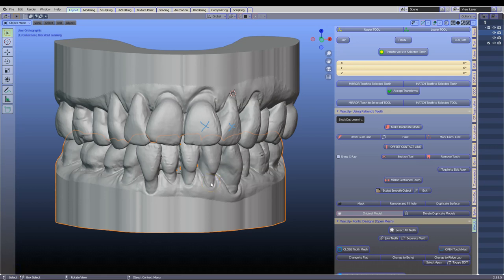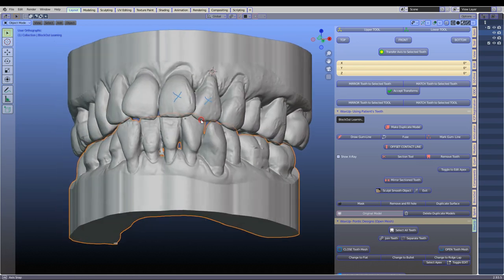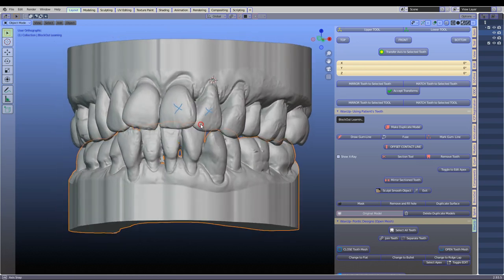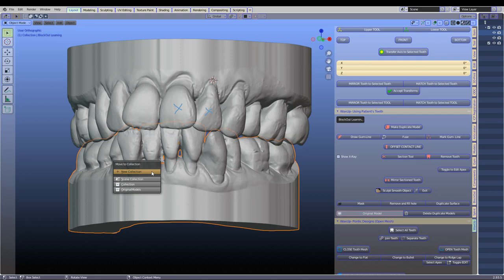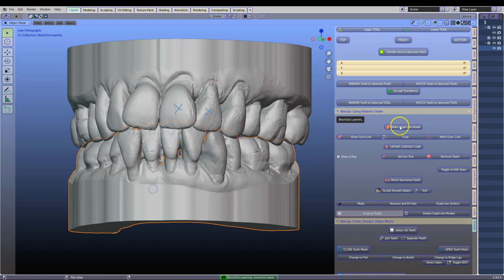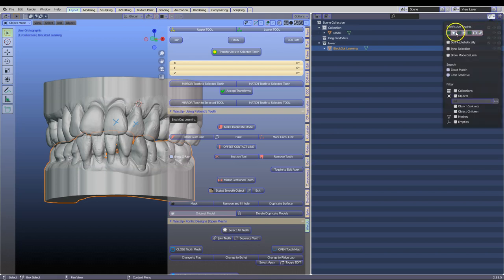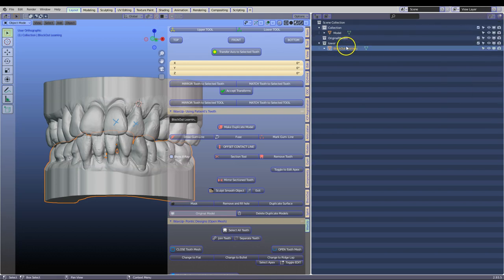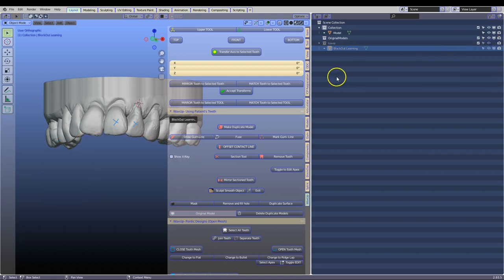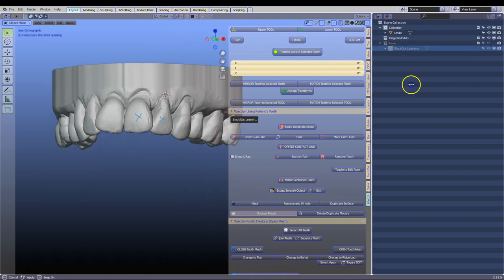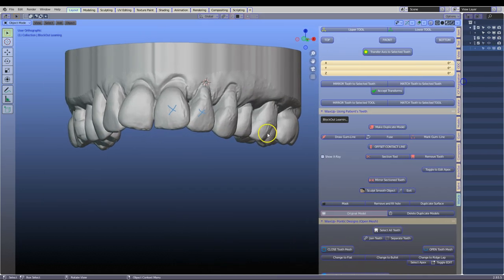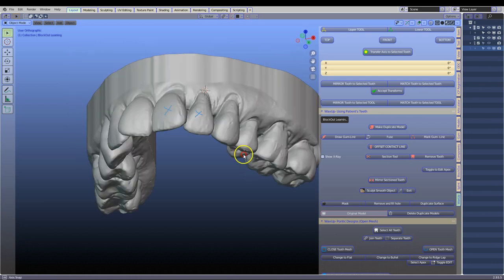Let us make a Maryland bridge. I have marked the teeth I am going to be extracting from the model. I am going to move the lower model into a different collection where it does not always pop up while we are using the H and Alt H shortcut keys. In the Outliner window I am going to hide this by clicking on the screen. Now it is sort of semi-permanently hidden.